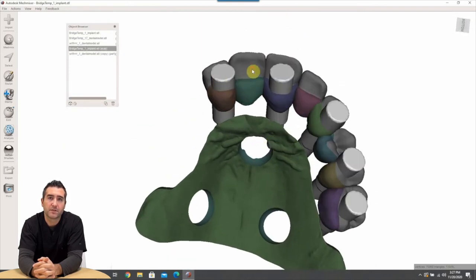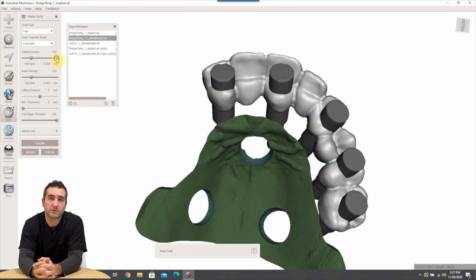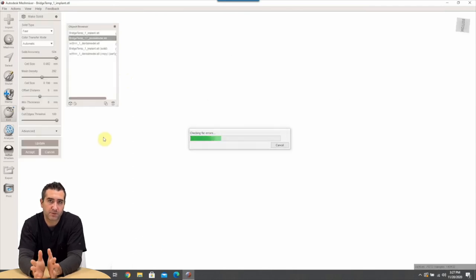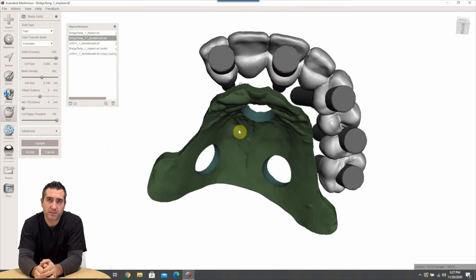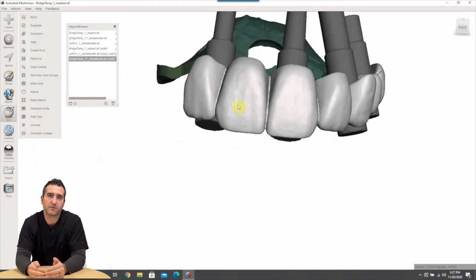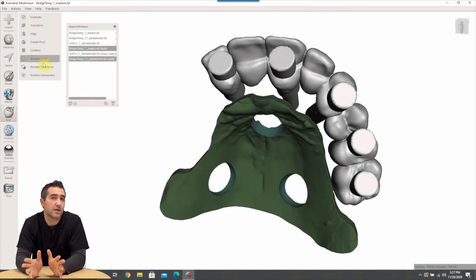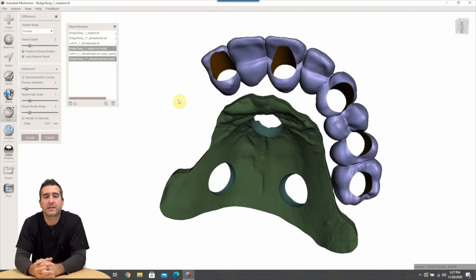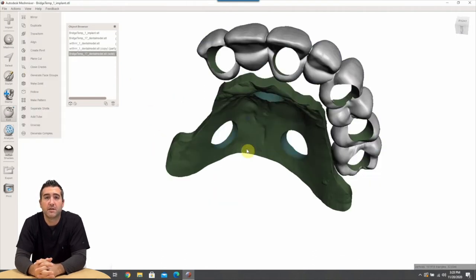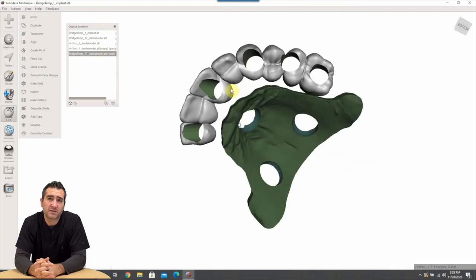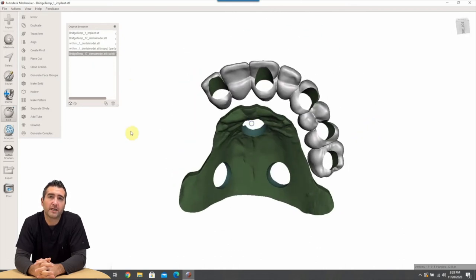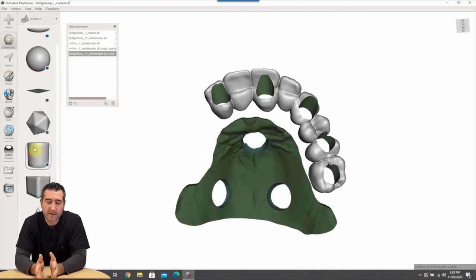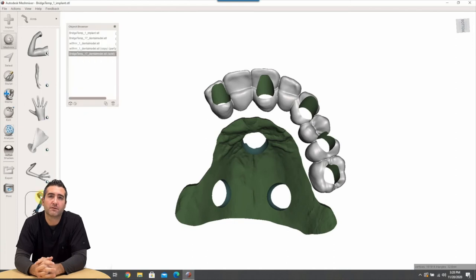So the next step that we're going to do is we're going to cut holes in our prosthesis and it's really easy. You just click the prosthesis first then you click your extension tubes and you hit boolean difference. Now if you guys are lost, come to one of our hands-on training courses where we go through this in detail. We spend basically a whole day going through this, every minute detail will be covered and it's really fun.